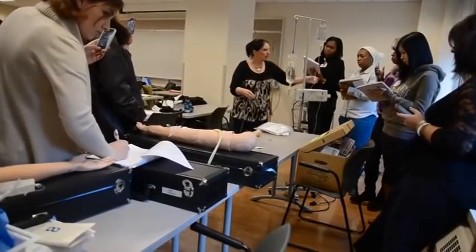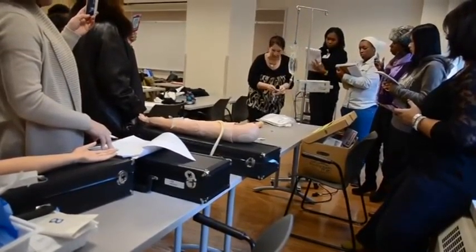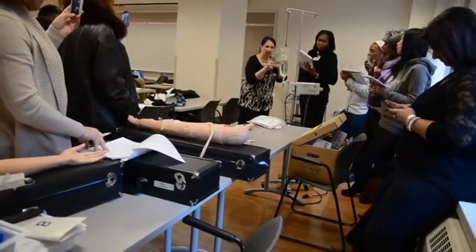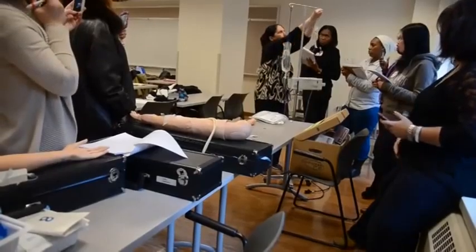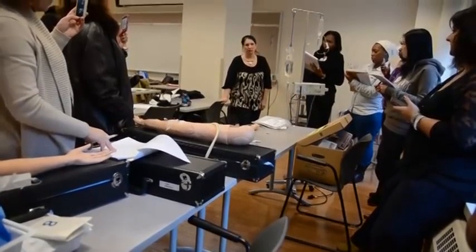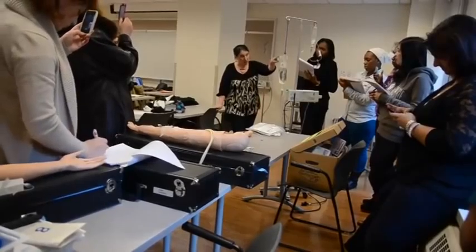So you would say 100 times 15, and if I said an hour, 60 — and then you tell me drops per minute. So now I walk in, it's done. This was wide open — close it. Take it down. Now, how long is an antibiotic with the tubing good for? 24 hours. So if I'm going to give this same antibiotic again — say it's 6 a.m. and I'm giving it again at noon — I'm going to put my new bag on this tubing. I can use this tubing again for 24 hours as long as it's the same antibiotic. I can't mix antibiotics.